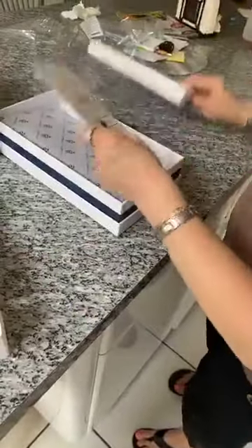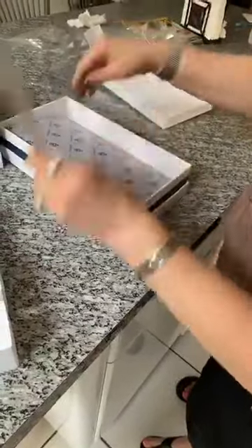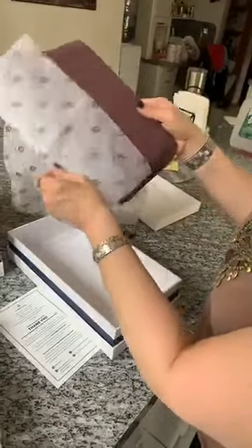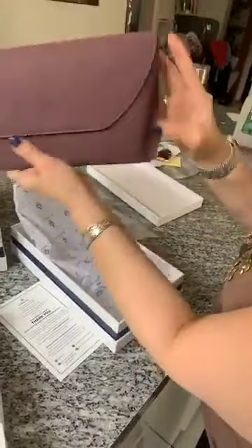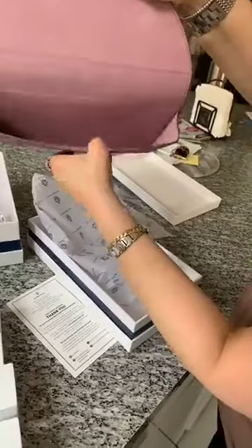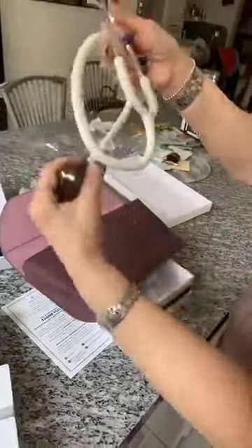Let me tell you guys, it's the quality — because this box is the quality. Look how beautifully wrapped this is. Nurse Jenny, you are on point, lady. Gorgeous color. Look at that. Inside, leather suede. Beautiful. Now I'm supposed to be able to just nicely harness my stethoscope in here to protect it, because we don't want to ruin it. And look at that — perfect.